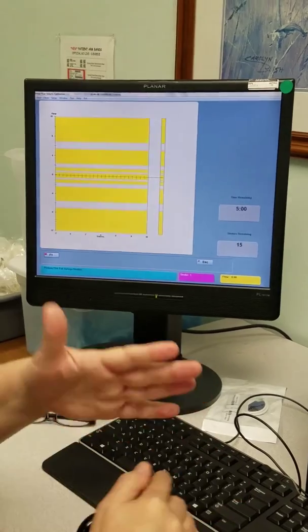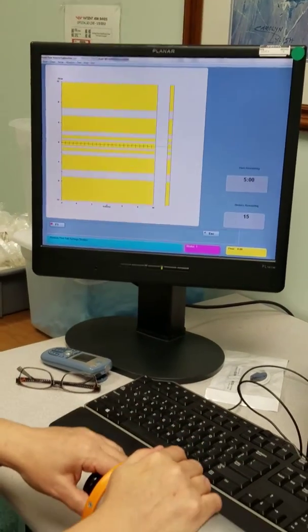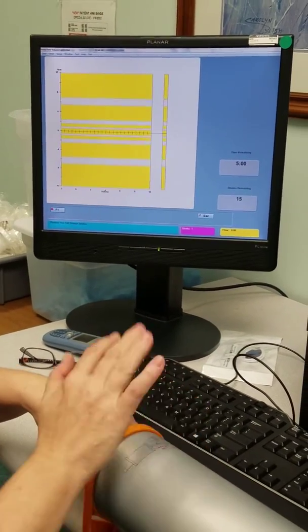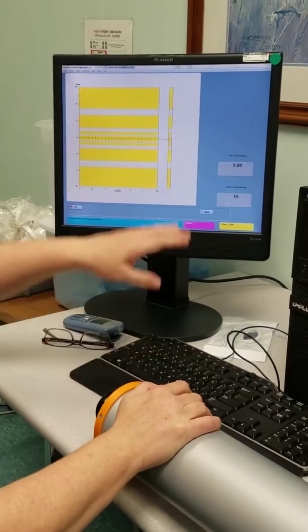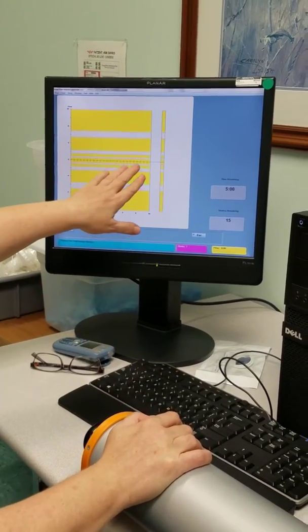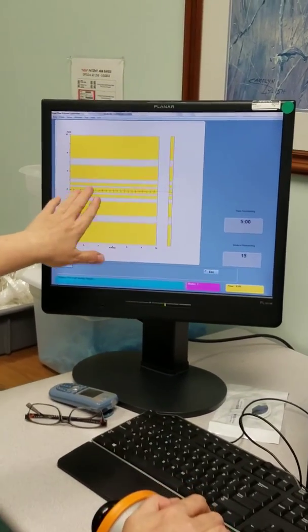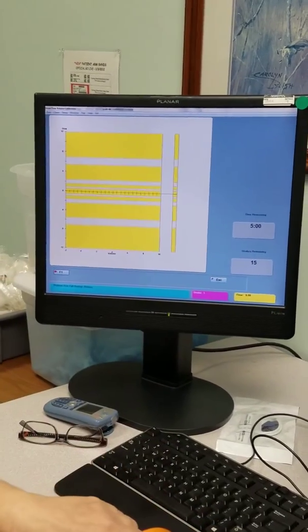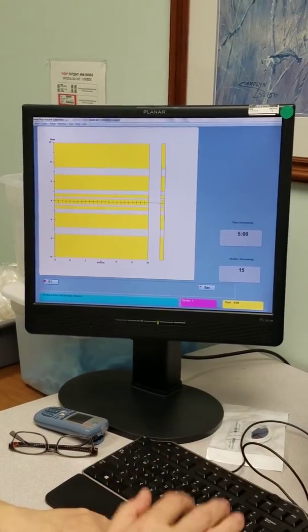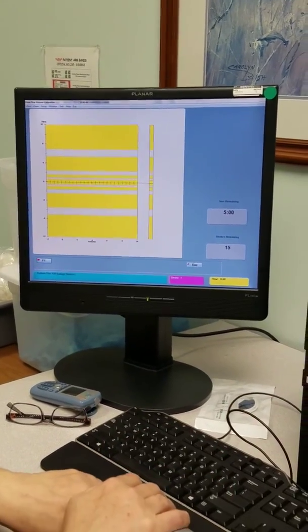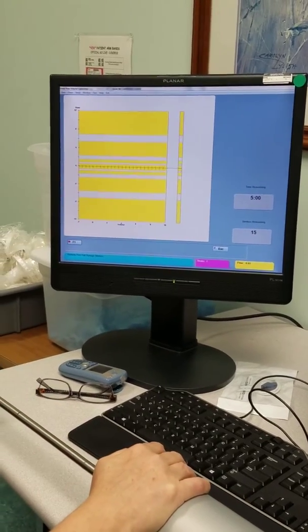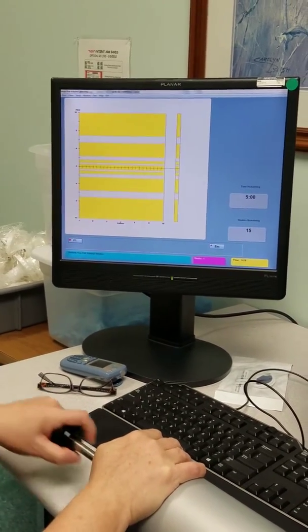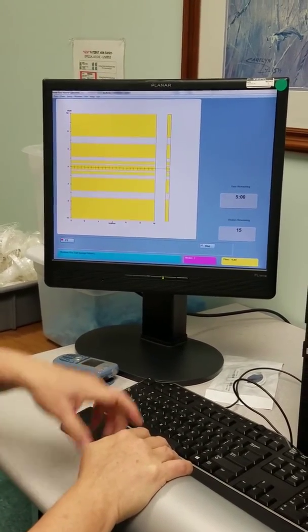When you first try to pull the syringe back it isn't going to want to go so just do a little tug at it and it will be fine. You have these landmarks. First stroke with any of it it's not going to count. The machine doesn't even register it so just go in and out at your pace.